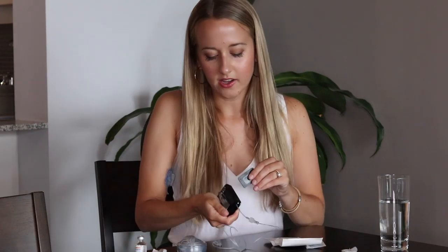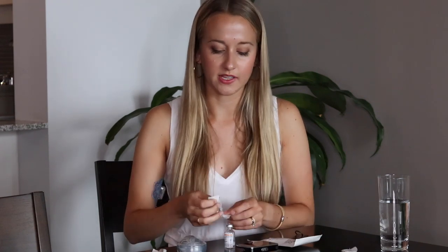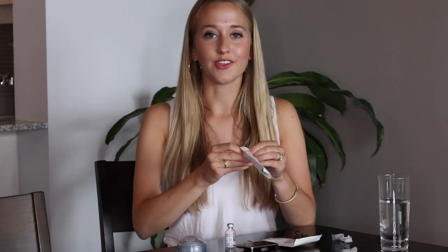The pump tells me to remove the cartridge and install a new one, so I remove the old one using this little tag. You want to hold it on one side because the cartridge comes out the other side — it suddenly pops out, and I quite often get my nail caught in there, so be careful. The old cartridge goes in my sharps bin. Having diabetes does mean accumulating some trash from all these wrapped products, which bothers me as someone environmentally conscious, but I need this to live — so I do what I can outside of diabetes to reduce plastic use.